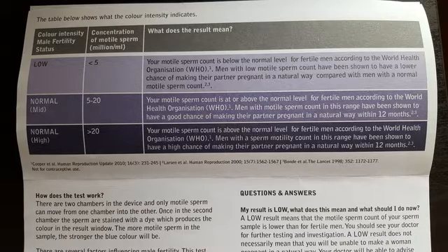The darker the shade, the better the result. In my professional opinion, SwimCount is the closest product out there to a lab-based semen analysis. In fact, in tests it has proven over 94% reliable when compared to a lab-based semen analysis. So if you're looking for an easy, efficient, cost-effective way to determine your sperm quality, then SwimCount is the way to do it.